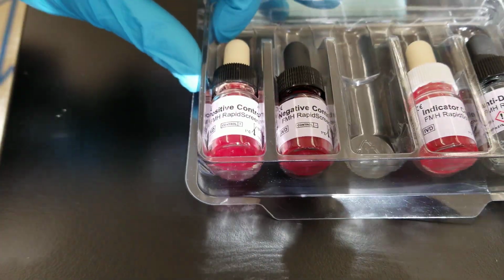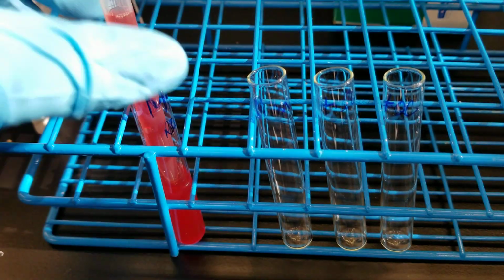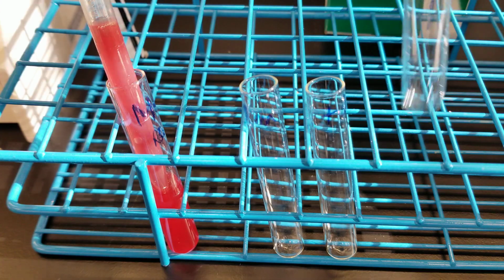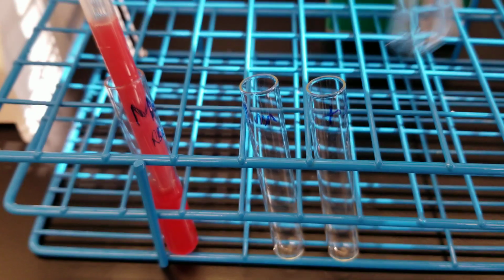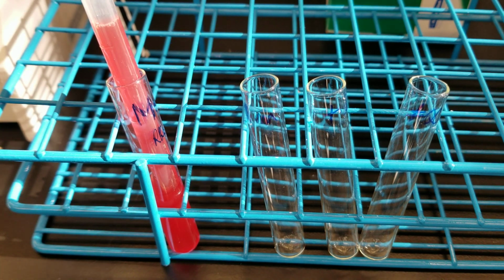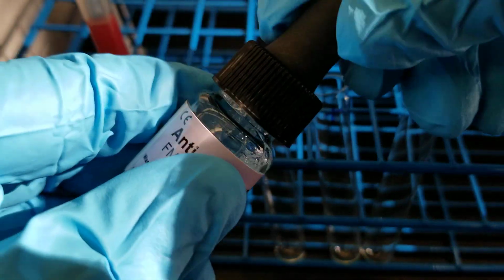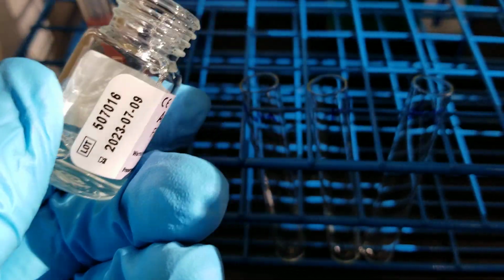All right, so let's go ahead and get started. The patient, obviously, those cells are going to come from the red cell suspension. So I labeled my tubes already to be the patient, positive control, and negative control. This is like a micro negative where you do the equal sign with the slash through it. Okay, so first we're going to take the modified reagent, anti-D, and I mixed it, but so you can see, we're going to add 1 drop to each of the tubes.